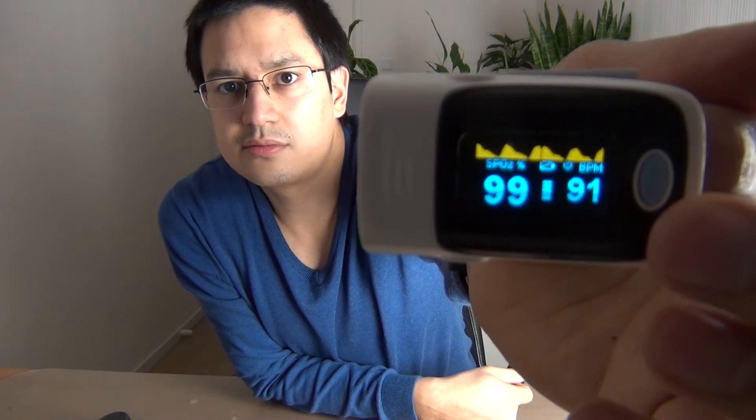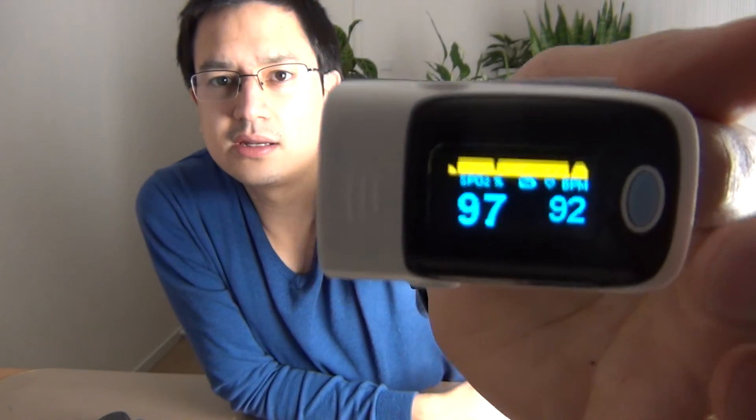As you can see, it now shows the beats per minute. You can also see a graph of my beats per minute. When I'm moving my hand it will corrupt the results, but when you stop moving again it corrects itself and starts reading my beats per minute again.